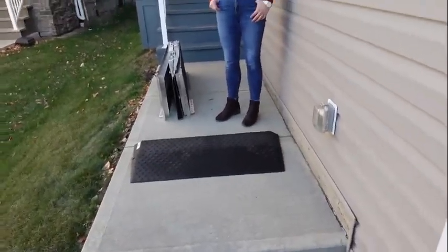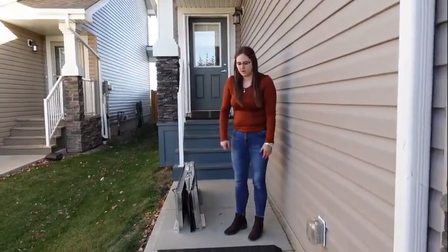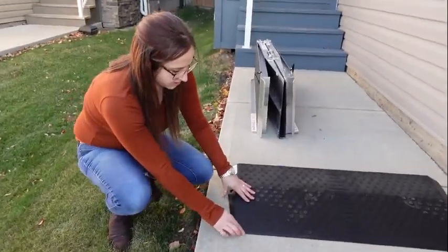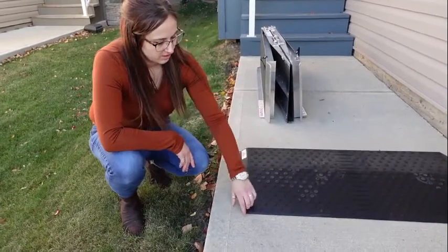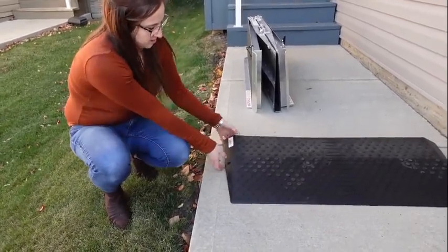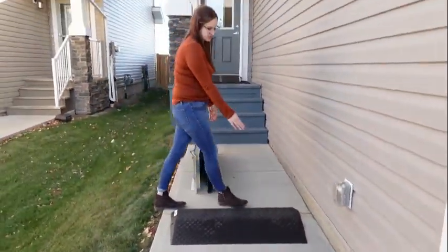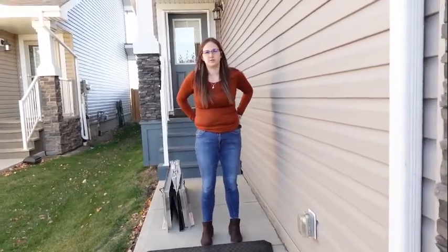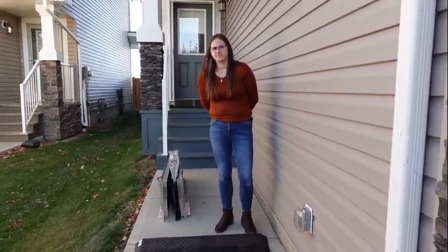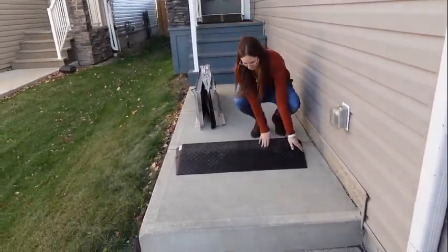What do I like about this? Personally, they don't scratch floors, whereas the aluminum ones might. They're durable. And this one has a nice slope on the side, so if you're going up with a walker or a wheelchair, you can get on it from the side easily — it's not a sharp edge, you can come at an angle. These work at a commercial building, at a home, or inside your house. They're standard 36 inches, but you can cut them too if it's too wide, since they're all rubber.